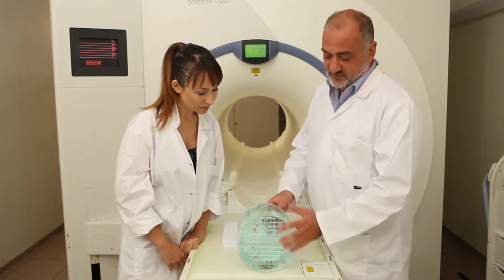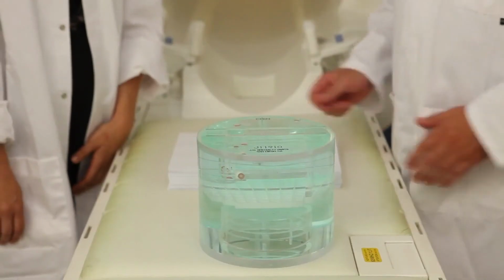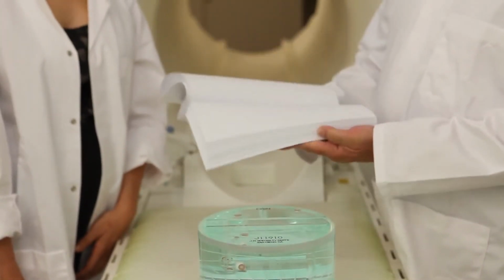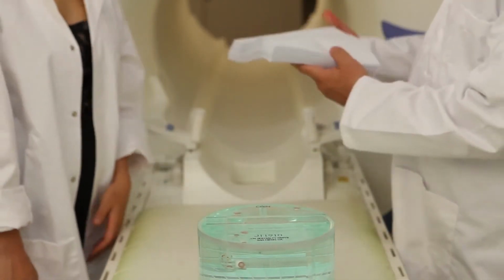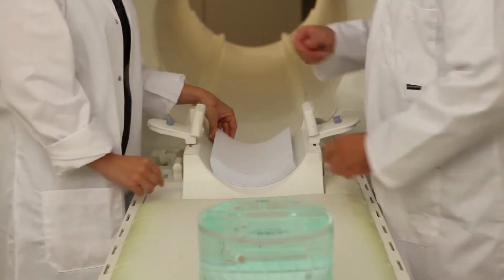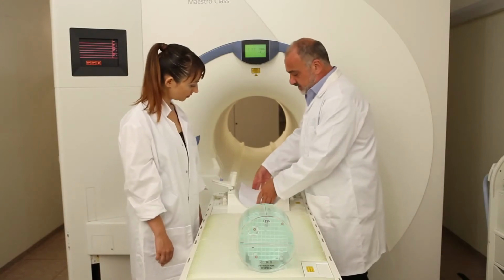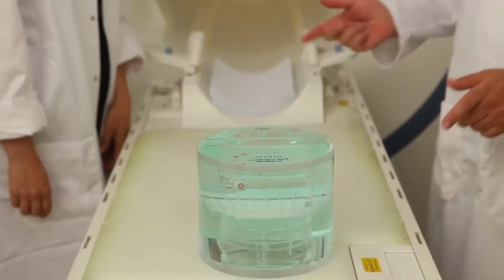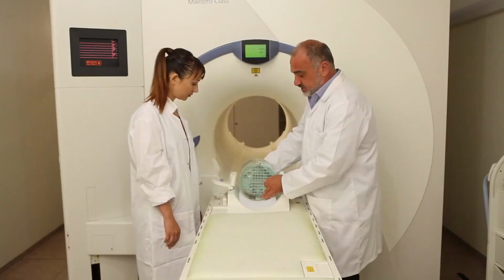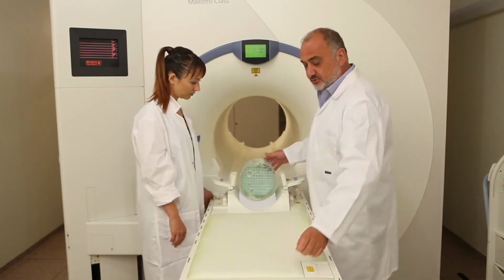As I told you, we have to have the center of the phantom at the center of the coil. In order to do this, we have to use specific tools, these sheets of paper, simple sheets of paper. We put these sheets of paper at this point, in this size. We check the size in order to be at the appropriate position. And then we shift and put the phantom on the base of the head coil. We're going to do the test using only one coil, the head coil. We're going to talk about this later.